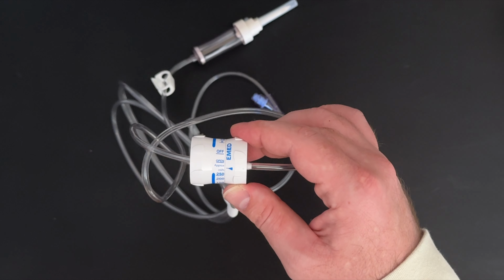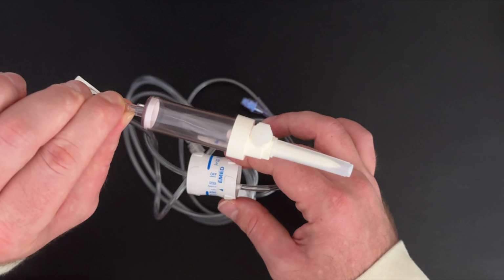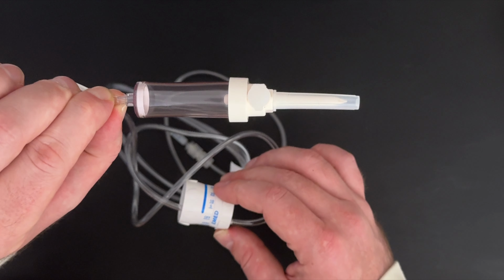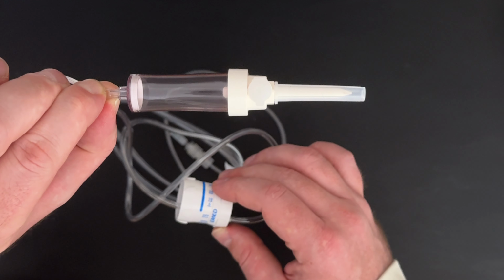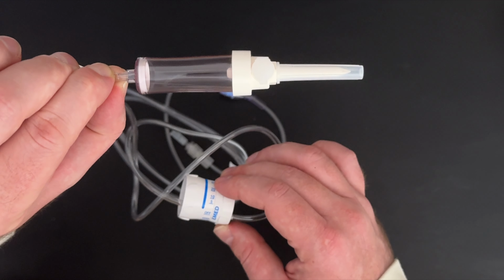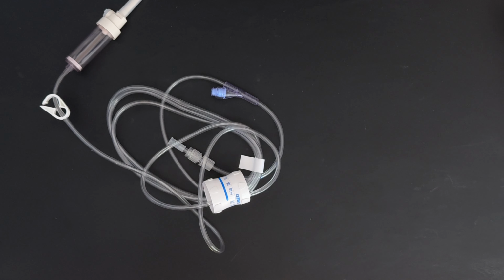The most important thing with any gravity infusion is to focus on the drip chamber and count the correct drip rate for the corresponding mLs per hour that is desired for that particular infusion. Remember, patient safety is the number one priority when doing a gravity infusion. So if you have any questions about how to use a dial-a-flow device or a particular IV tubing, please reach out to your nurse manager or nurse educator for further assistance.